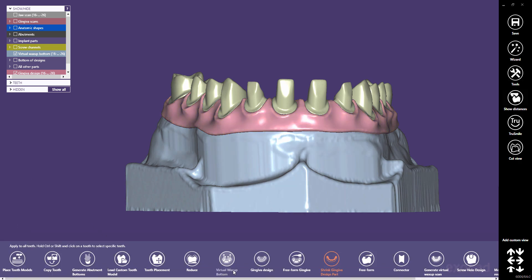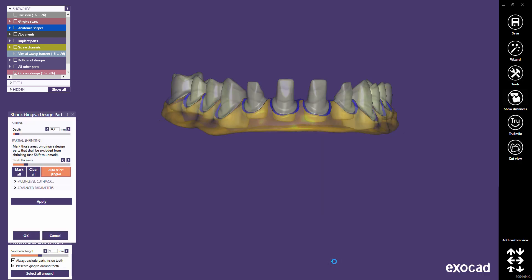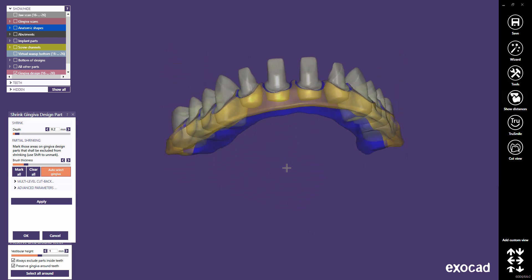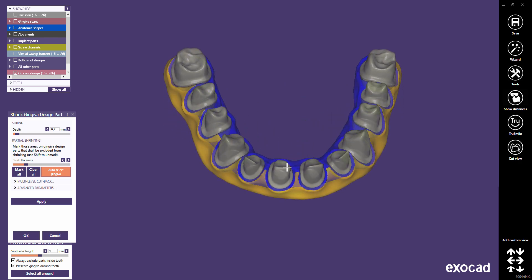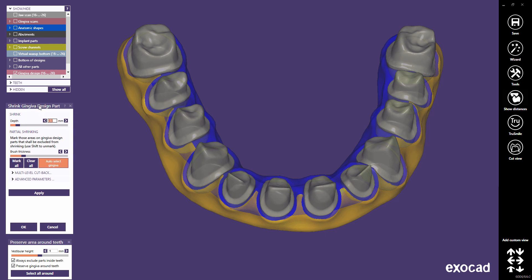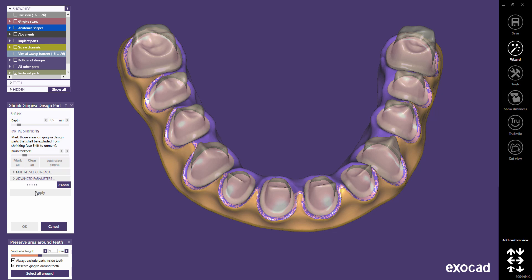Stay in Expert mode and proceed to the Shrink Gingiva Design Part step. In the Gingiva Cutback step, the lingual part of the gingiva and the cross-section areas with the anatomical teeth are excluded from shrinking. We can use this feature for less shrinking of gingiva borders around teeth. To achieve this, we will perform a multi-level cutback. First, we shrink the buccal part excluding the borders with 0.5 mm. Note that the Shrink Gingiva Design Part is only accessible in the Expert mode.